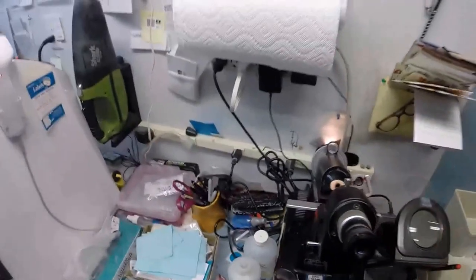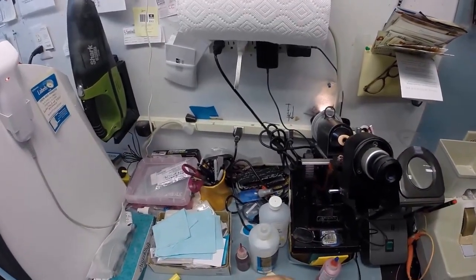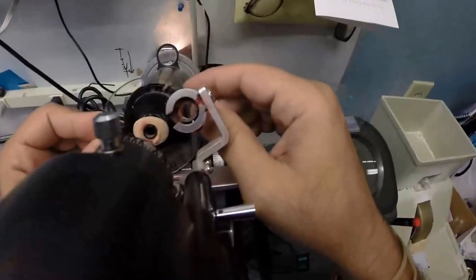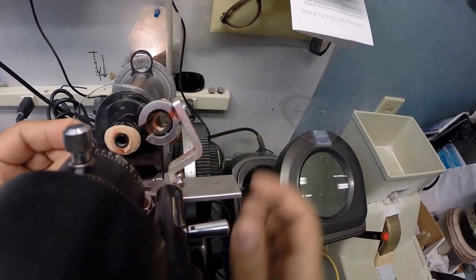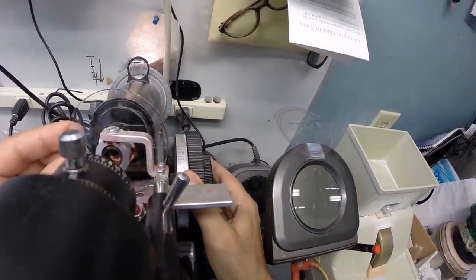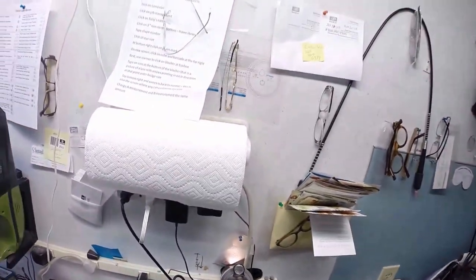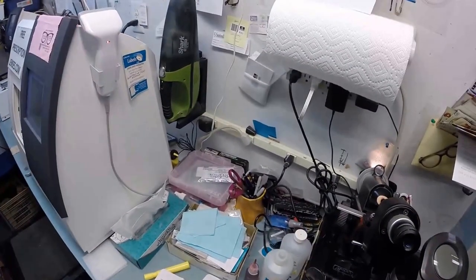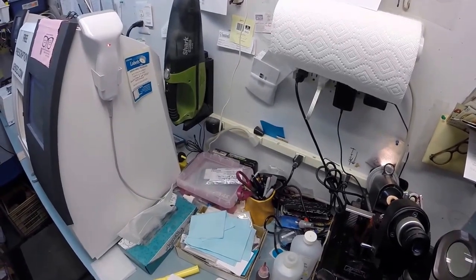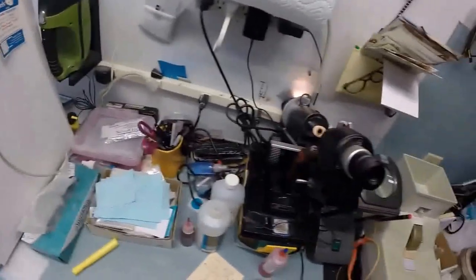Now let's do the same thing for the left. Your left eye reads plano minus 75 at 115. Let me turn this on, make sure it is all zeroed out. Take the left lens out of the sleeve, pull the laminate off the front, place that on there. Put your lens into my lensometer. I am going to rotate it until the sphere power comes in clearly, find the optical center of the lens, check your astigmatism correction, and let's put three dots on your lenses. I am going to put an L on here, which stands for not right, just like me.